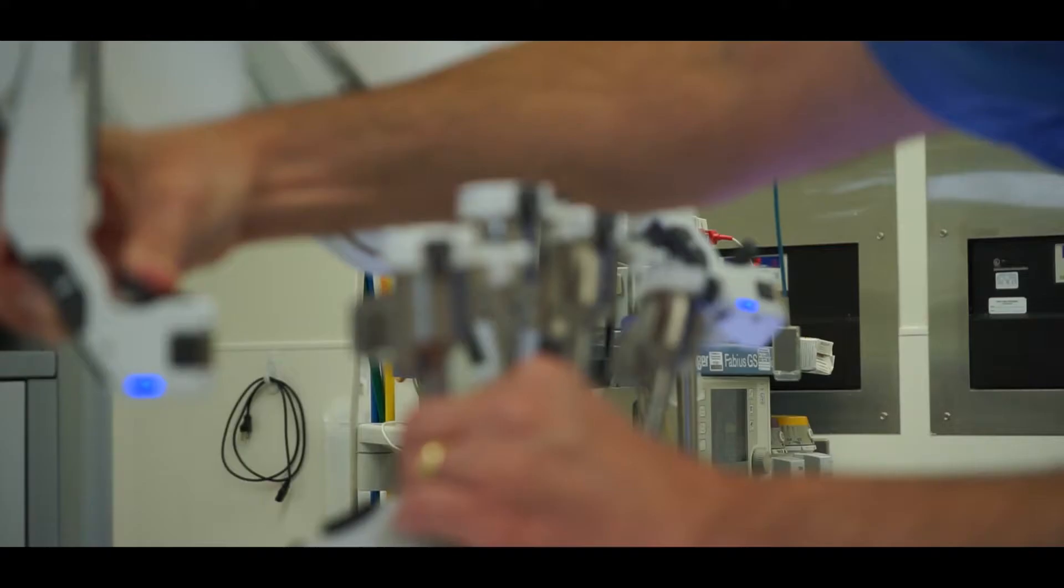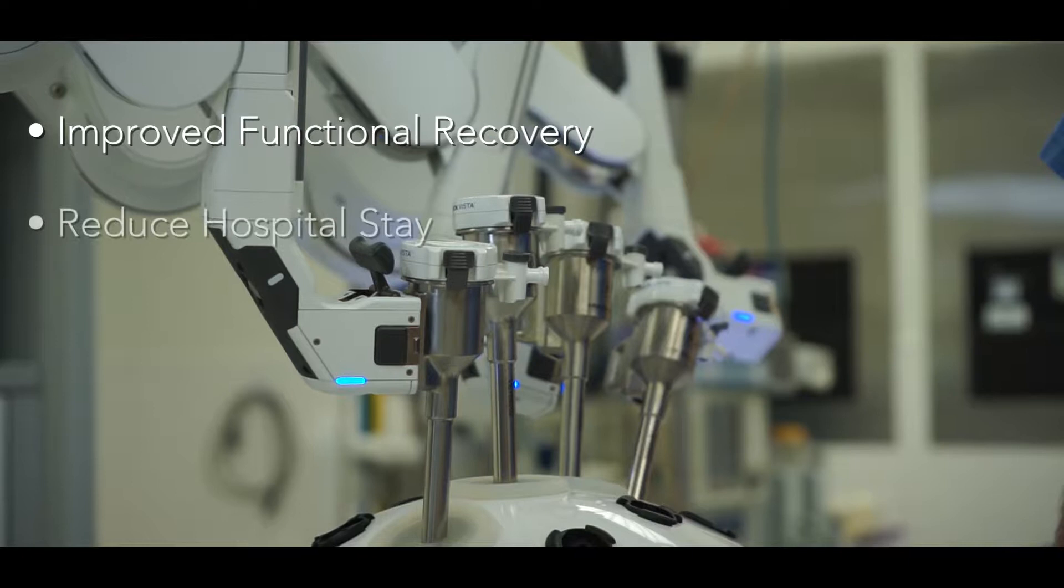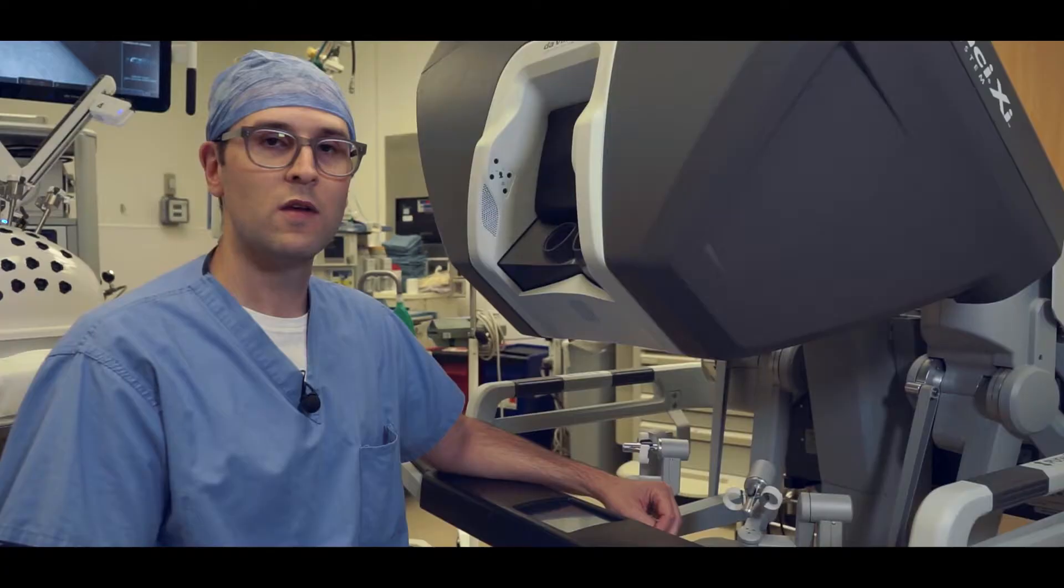Additionally, the robot scales our movements. It's a very advanced piece of technology that allows for computer assistance, improved functional recovery, reduced hospital stay, less bleeding, less post-operative pain, and less use of narcotics post-operatively.